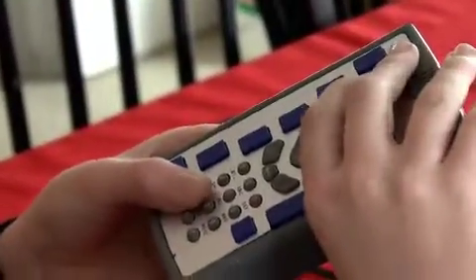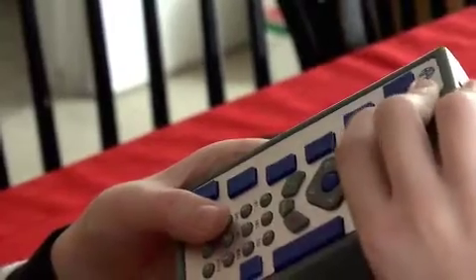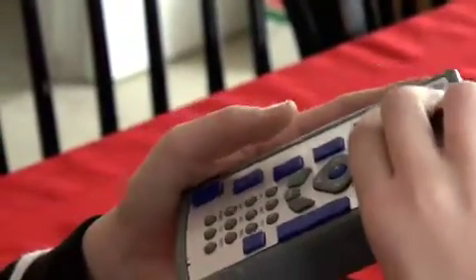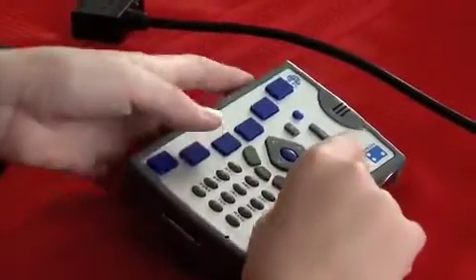Below that there's three buttons. This key is called Program 1. If you press it, nothing happens, and if you hold it, nothing happens. Program 1 is left on the Braille Plus for some future expansion that I don't know what it is.